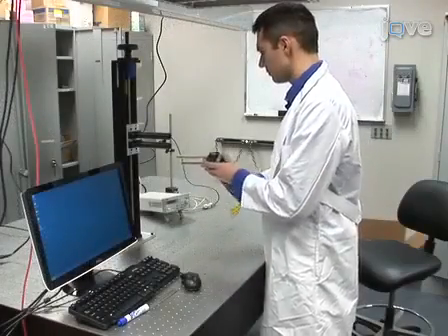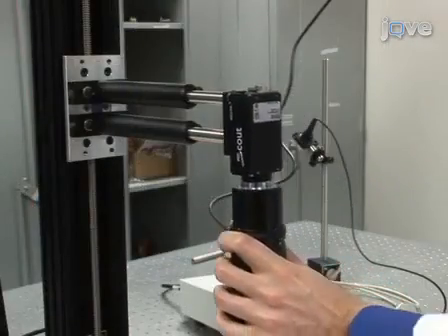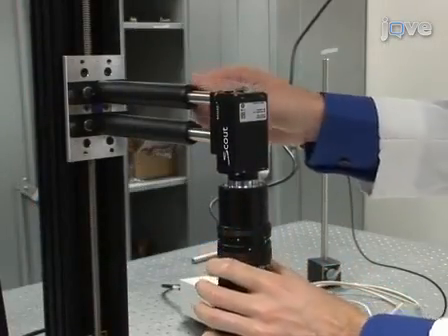To begin building the imaging system, mount a camera with a macro zoom lens to a vertical stage, or you could mount the camera to a surgical operating microscope.